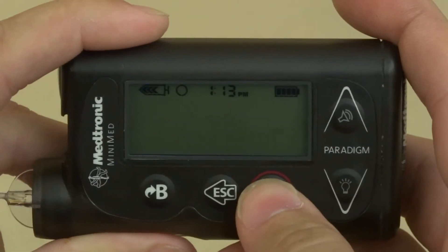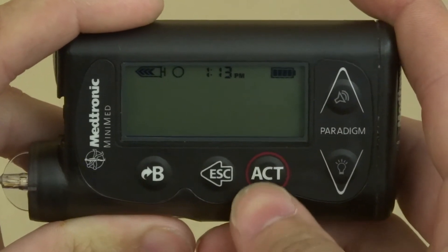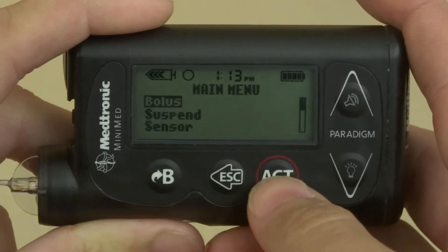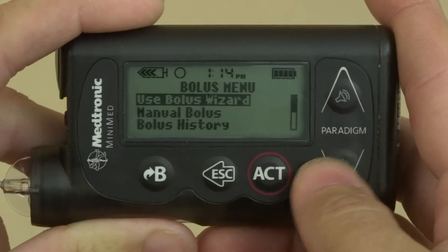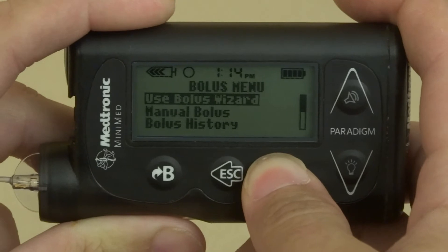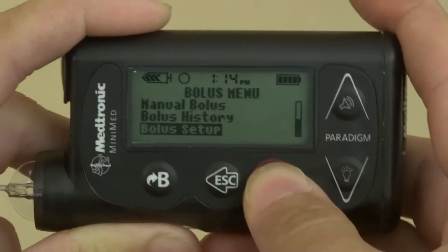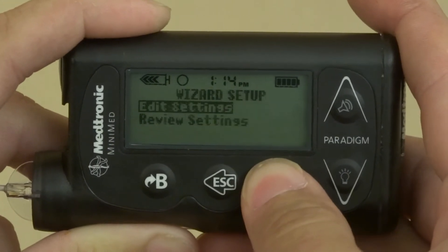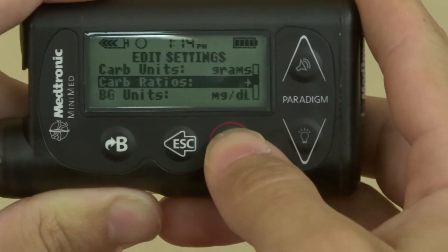To change the insulin to carb ratio on the MiniMed pump, hit the ACT button to get to the main menu, then hit the ACT button again as it's on bolus. I'm sorry — go down to bolus setup, then hit ACT to go into bolus wizard setup, edit settings, hit ACT, and scroll down to carb ratios.